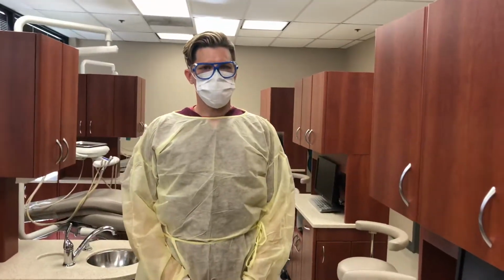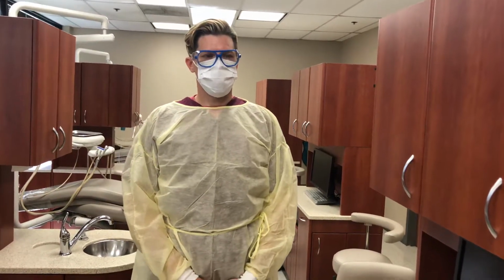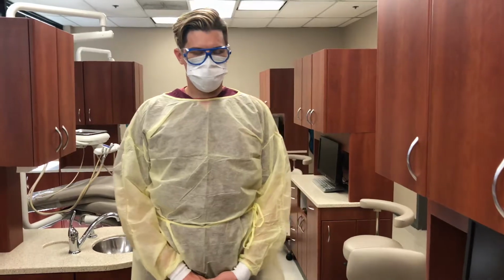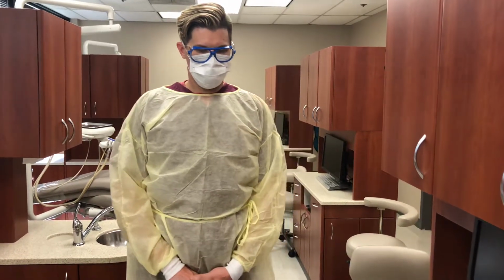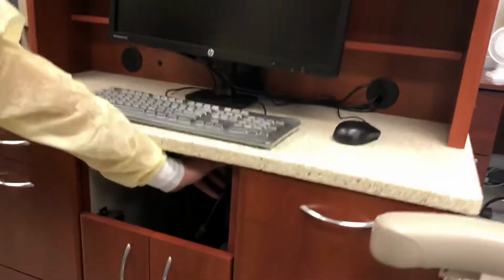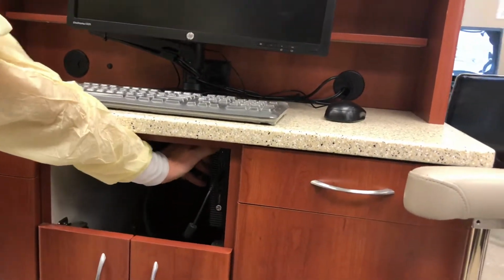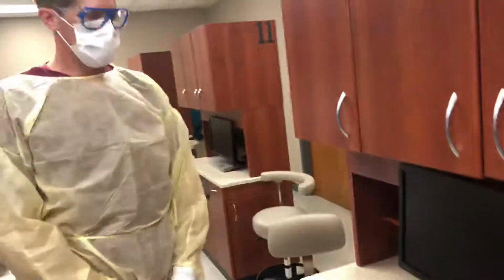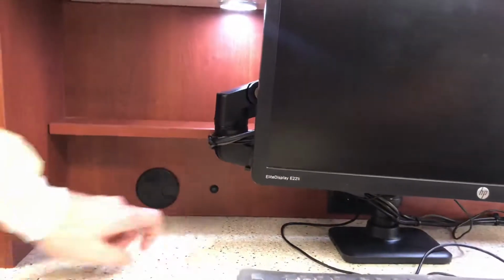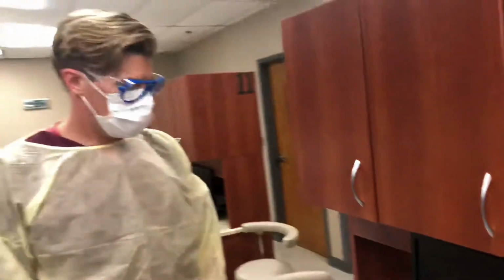This is part 3 of unit setup. As always, if this is a little different from your printed directions, always follow your printed directions unless stated otherwise. Turn on computer. Log on to computer, EagleSoft, and Bingo. Verify V drive is visible. Turn on back cabinet light. At this time, move on to other items while computer is loading.